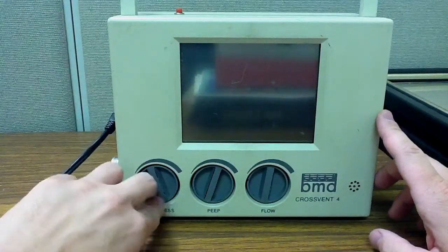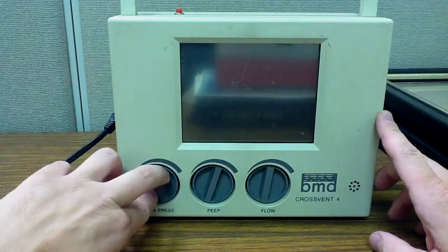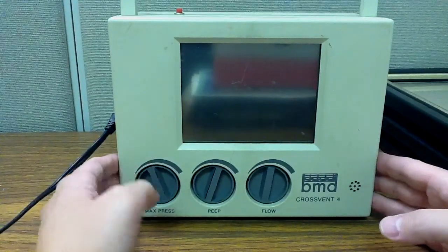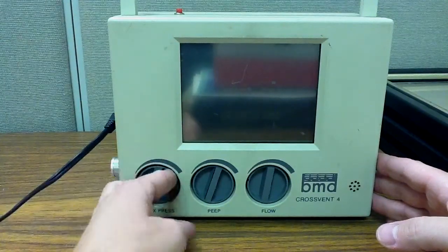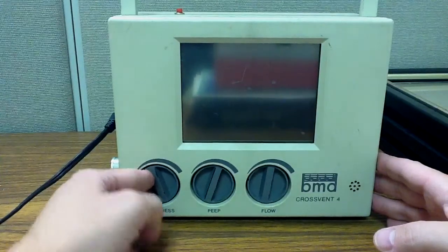Some of the things to note: this is the max pressure dial here. When I start out talking about adult mechanical ventilation, this max pressure here, we want to have the pressure all the way up.